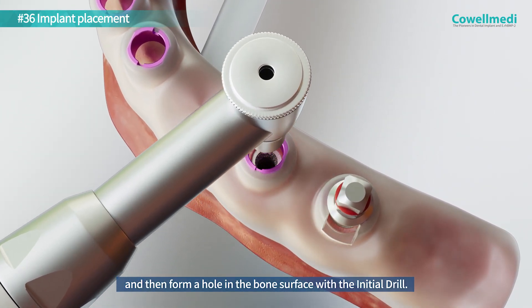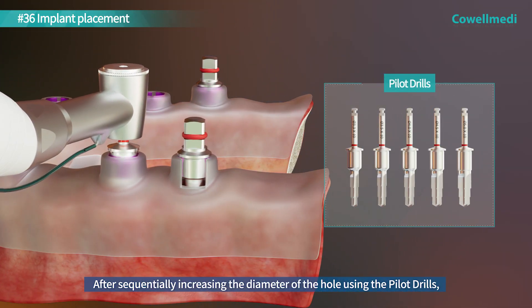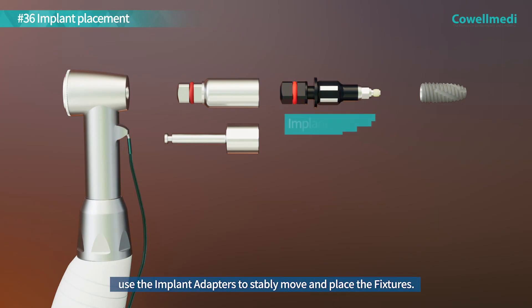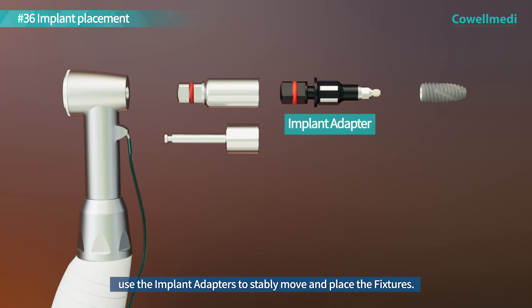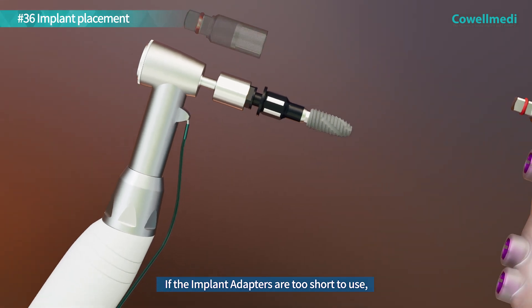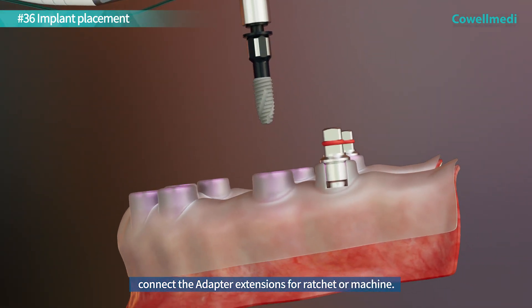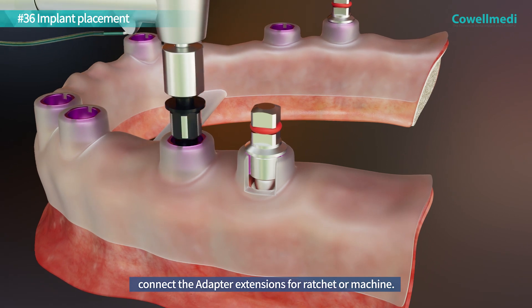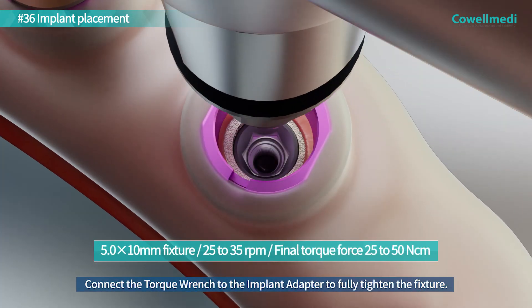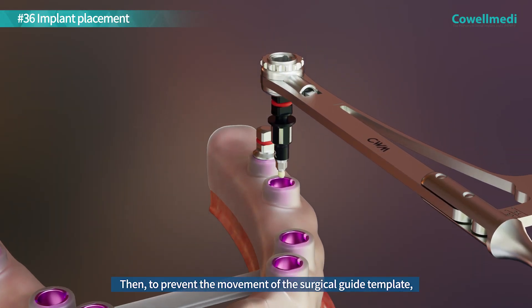After sequentially increasing the diameter of the hole using the pilot drills, use the implant adapters to stably move and place the fixtures. If the implant adapters are too short to use, connect the adapter extensions for ratchet or machine, then connect the torque wrench to the implant adapter to fully tighten the fixture.